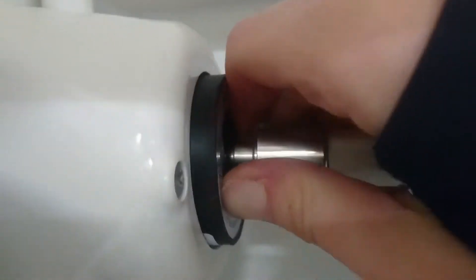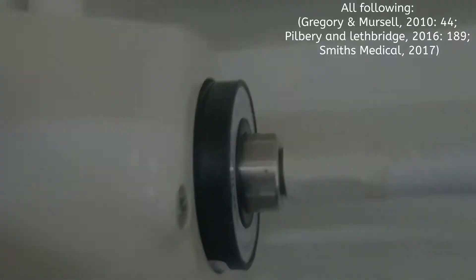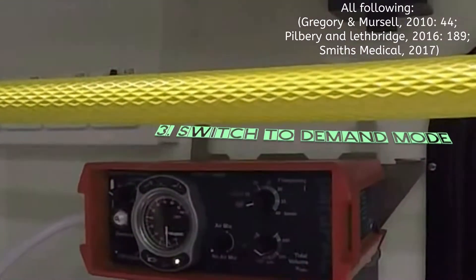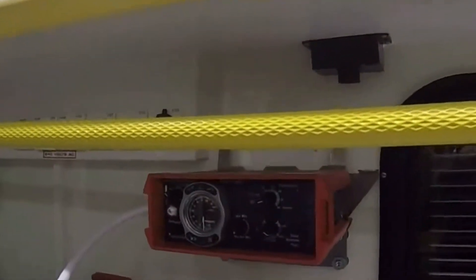Here's a close-up. Again, push and twist. When you turn it on, the ventilator should complete a self-check. The alarm lights should flash in sequence. There should be one burst of the high pressure audible alarm and the orange indicator should flash for 60 seconds.